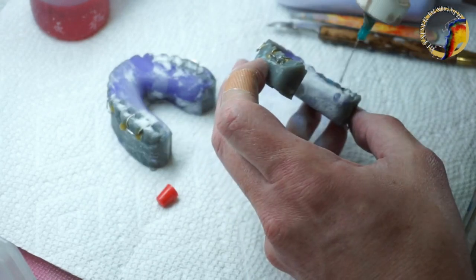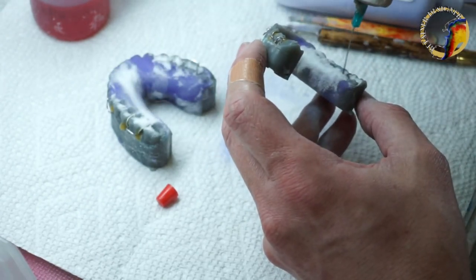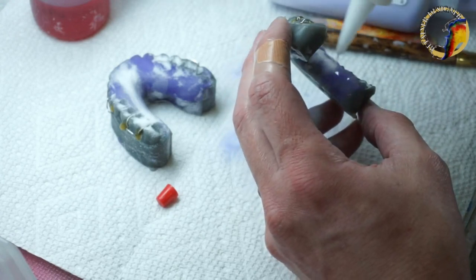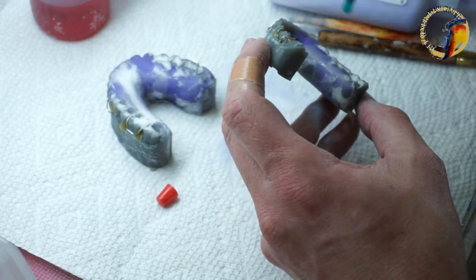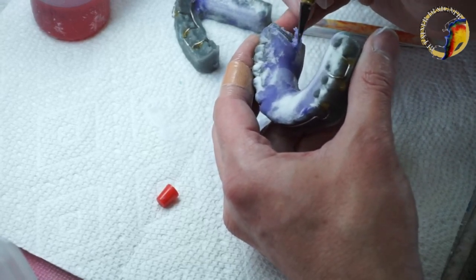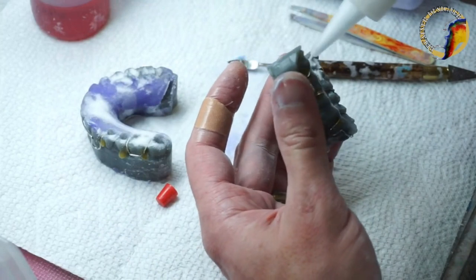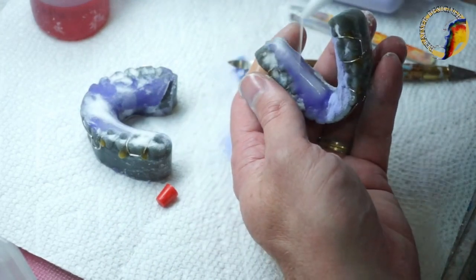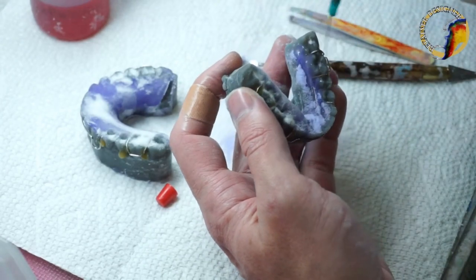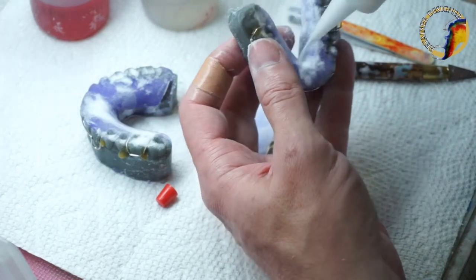You see that on the upper — starting to slump. Usually I'll do one side of the lower then move to the next model. A few weeks ago on the live stream I showed how to sprinkle multiple models at once — you don't have to do one pressure pot, then another, then another. If you get fast enough with your acrylic you can actually do multiples at a time. I'll put a clear coat on this other underside and then try to cut the upper.